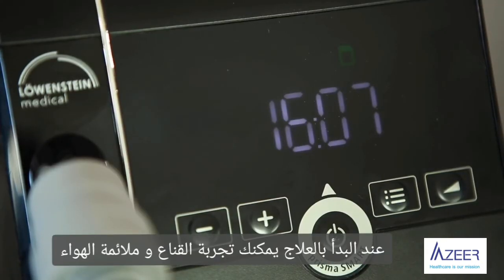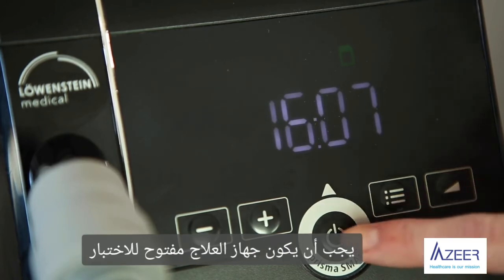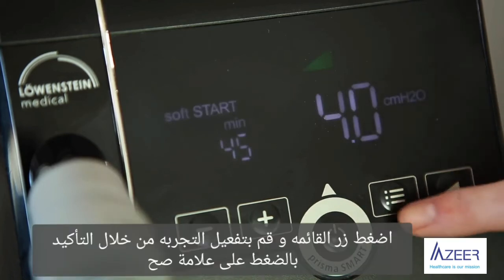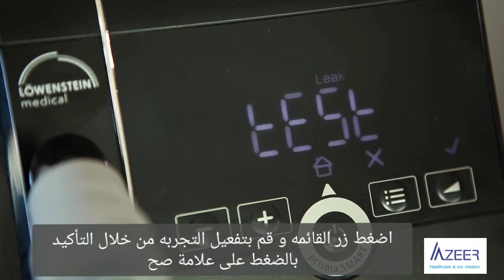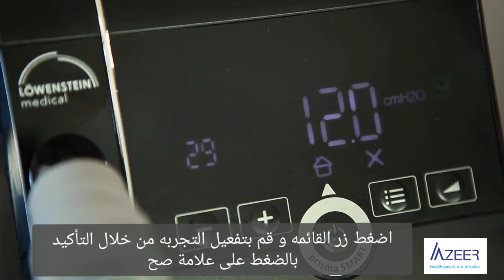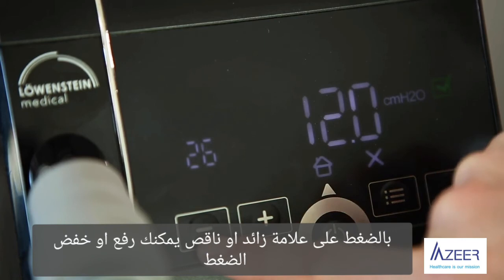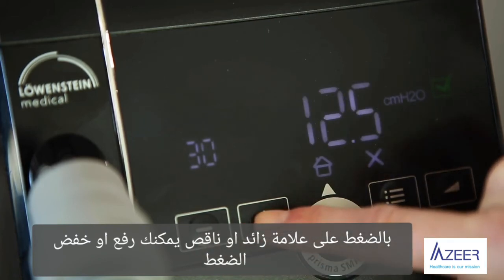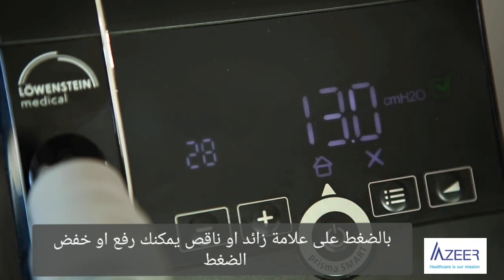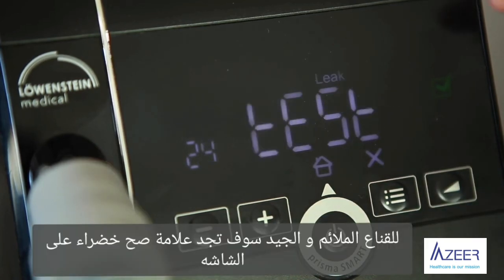After the start of your therapy, you can check the mask for air tightness. The therapy device has to be switched on for the test. Press the menu key and activate the mask test. By pressing the plus or the minus button, you can increase or decrease the pressure. A good mask fit is indicated by a green check mark.